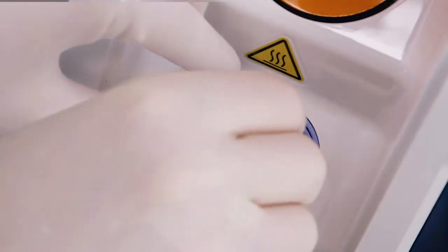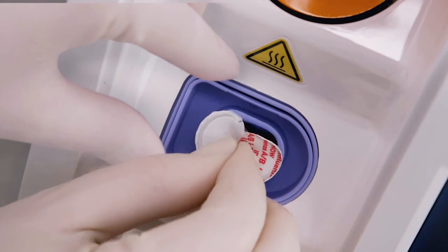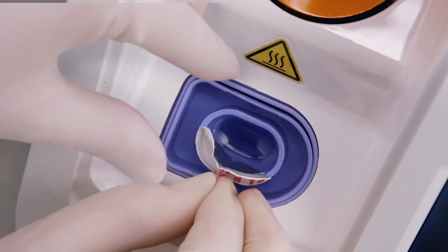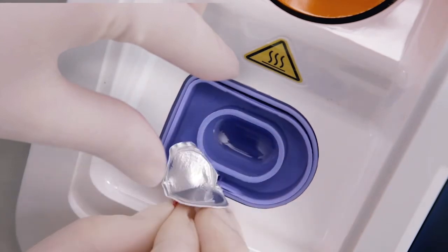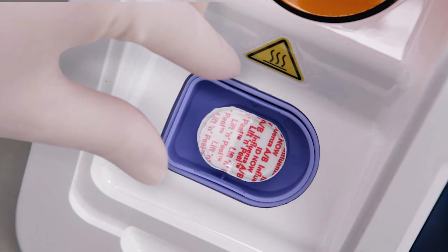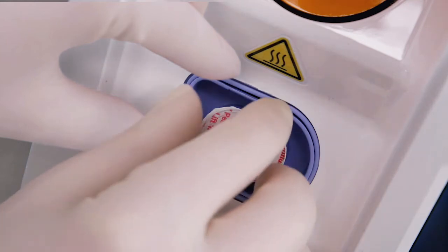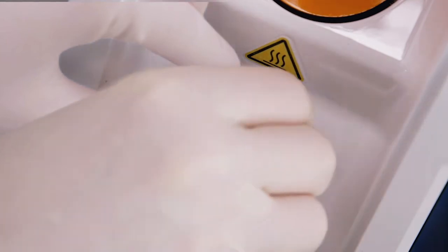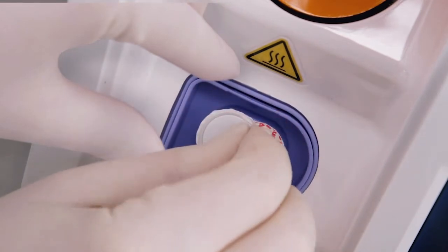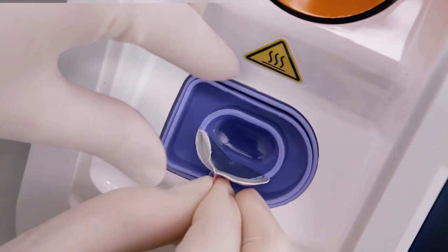After the required minimum warm-up, remove the foil seal from the blue sample receiver to expose the elution buffer. It's important to ensure that the sample receiver remains in the instrument, so use two hands in this step — hold it down with one hand and remove the foil seal with the other.